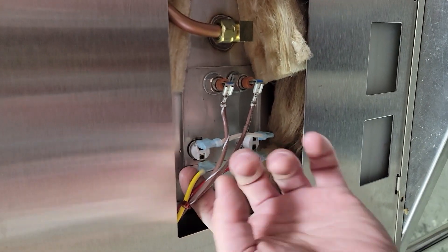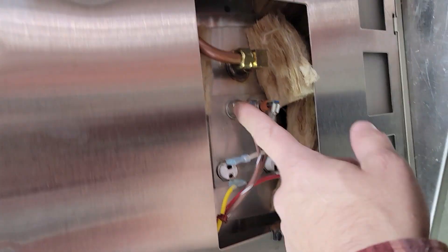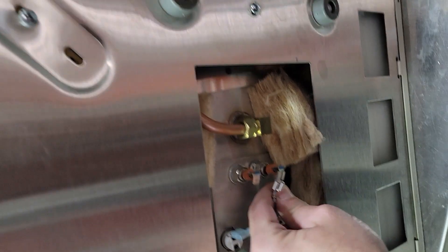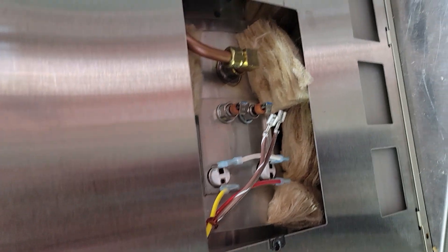Since that looks solid, it's just coloring from heat damage, so the bottom is fine. Before we flip it back over, let's do a quick check of the heating element and see what the resistance level is. We're in the depot, so we can spend a little extra time here — let's check everything and do it right.